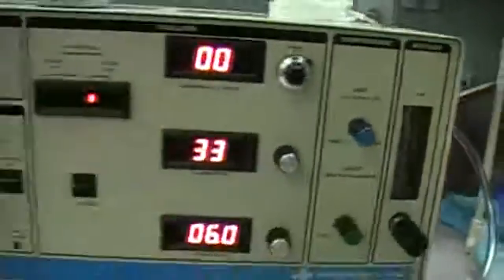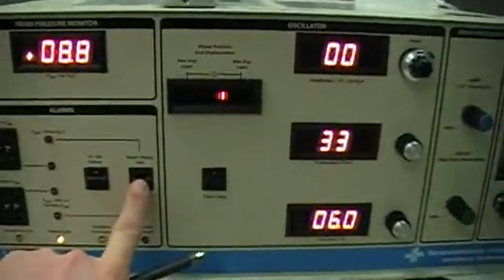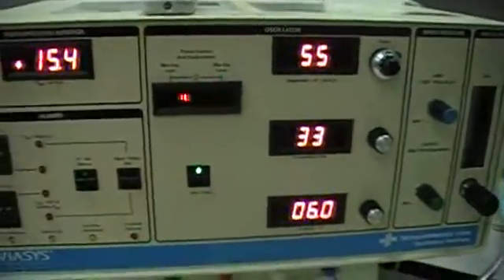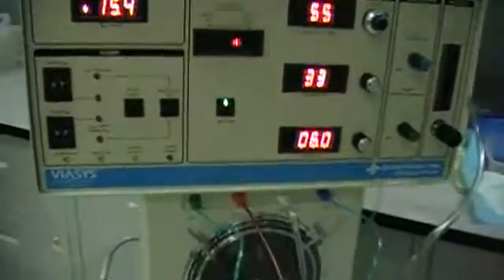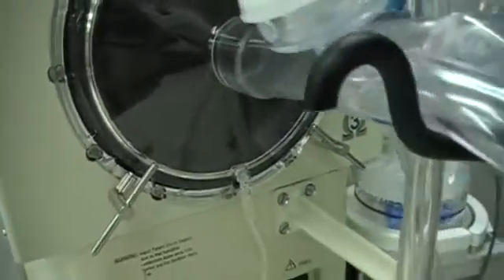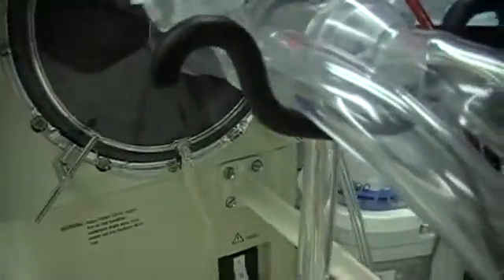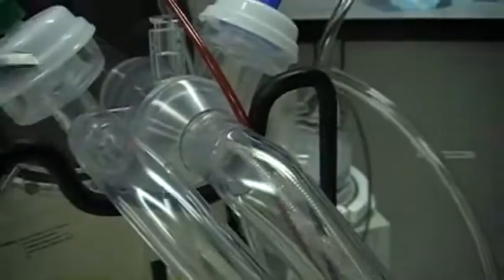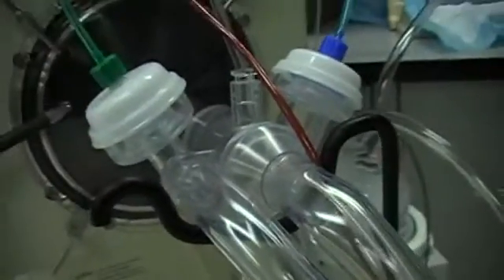Let's hear what it looks like when we set it up — I'm just going to pressurize it. It makes quite an unusual sound. You can actually see the stereo speaker element here oscillating back and forth. We have a continuous flow of gas going through the circuit, and this speaker element oscillates it back and forth, giving us the jiggling motion we see in our test lung.